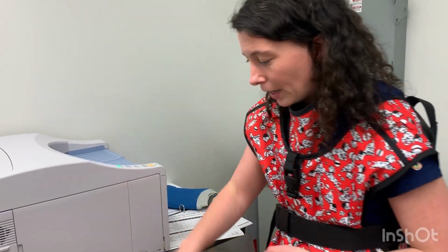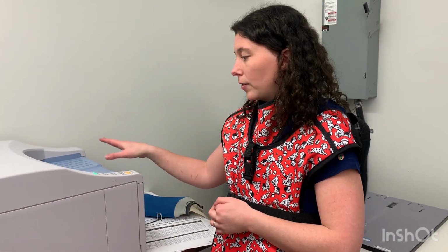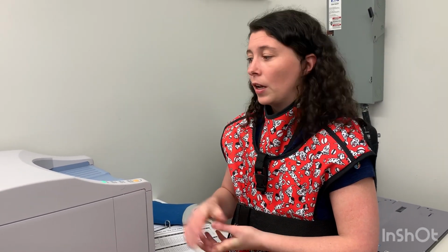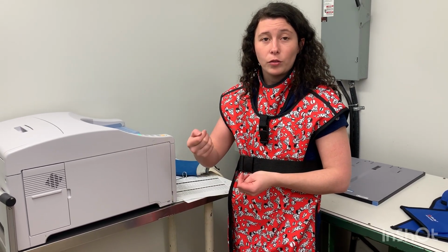You have all the chemicals underneath here, and you'd want to make sure that they are all full: your developer full, your rinse full, your fixer full, all of that ready to go. Then the cassette image would go through and be processed with all of those chemicals. It would come out the other end. You want to make sure it's got a little bit of a drying rack on the other side. When it's coming out onto the drying rack, don't pull the image forward, even if you're anxious to see it, because pulling it forward can destroy the image as it's drying.